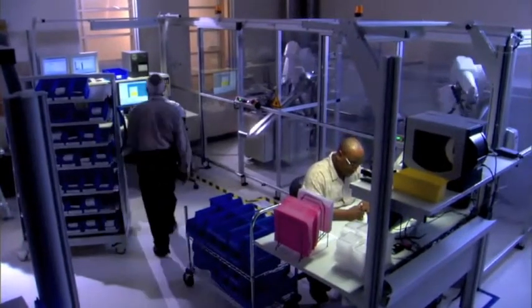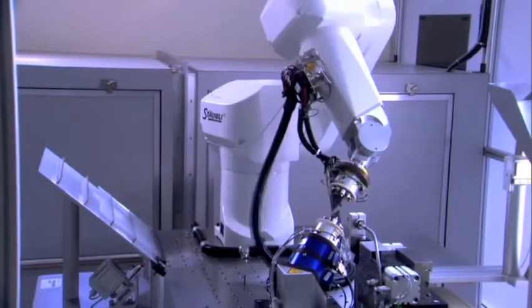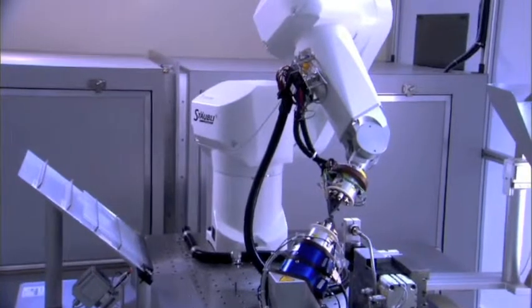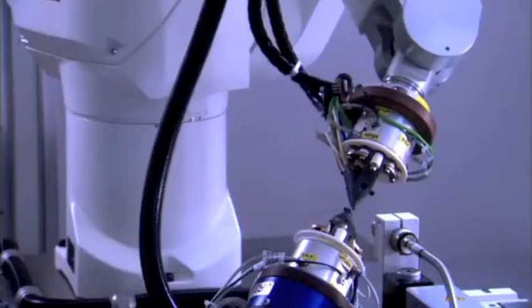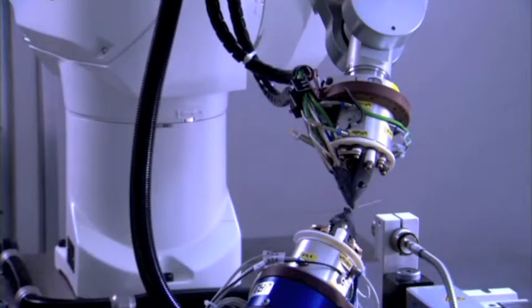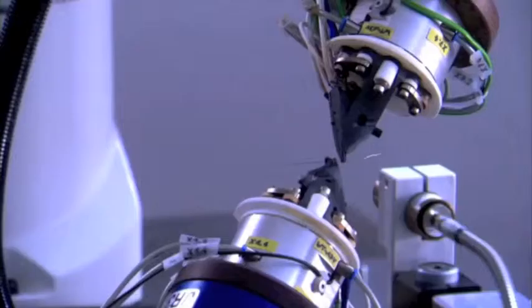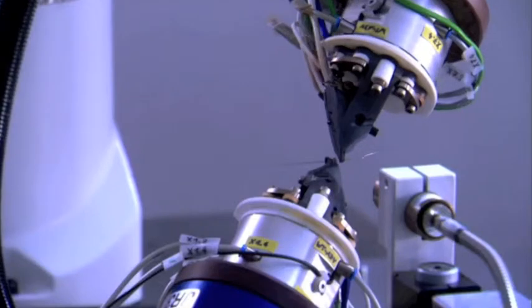Once your treatment plan is determined, SureSmile directs a robot to bend a shape memory alloy arch wire according to your doctor's prescription. This wire is designed to deliver gentle forces to move your teeth consistently and directly to the desired finishing position.